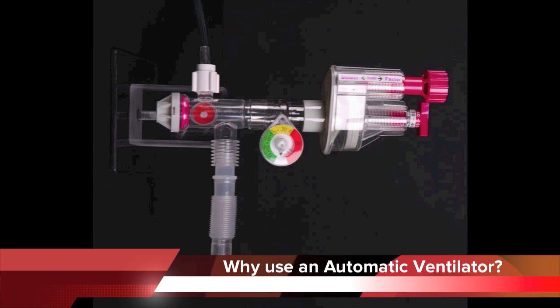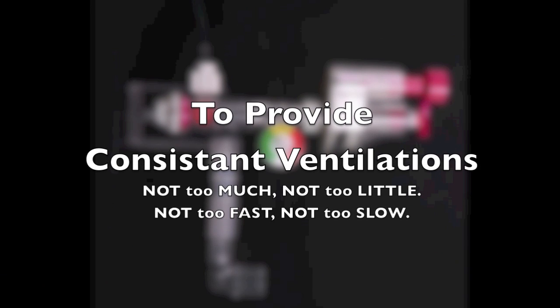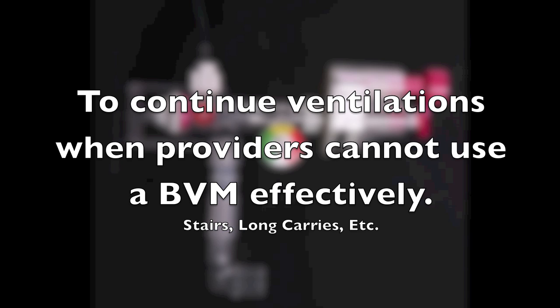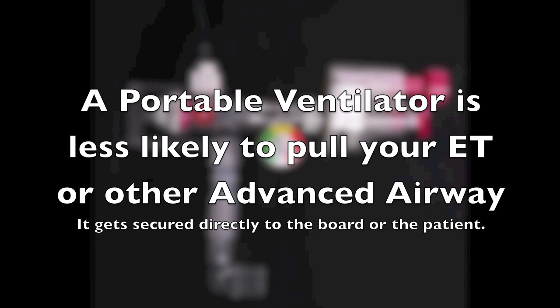Why should you use an automatic ventilator? Number one, to provide consistent ventilations, not too much, too little, too fast, or too slow. To continue ventilations when you as a provider will not otherwise be able to use a bag valve mask, such as transport across long carries or downstairs. Also, a portable ventilator is less likely to pull your ET tube or other advanced airway.